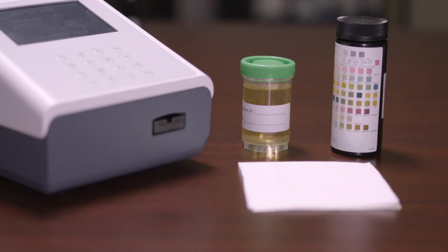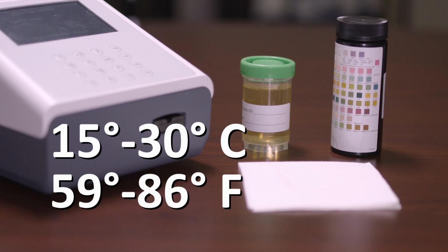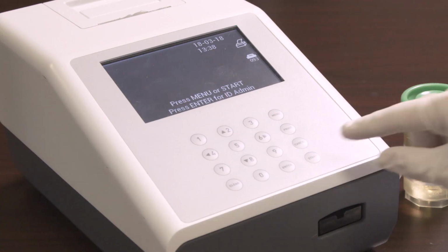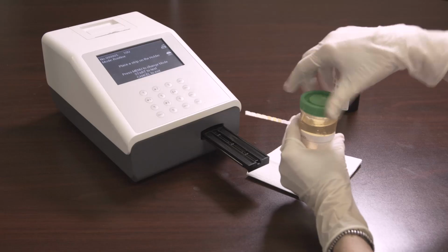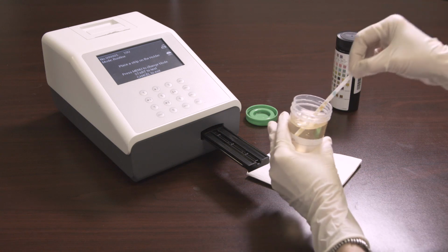To begin testing, allow the strip, urine specimen, and/or controls to reach room temperature at 15 to 30 degrees Celsius or 59 to 86 degrees Fahrenheit prior to testing. Remove the strips from the closed canister. Once Start is pressed, the clock will start to count down from 65. The operator has 3 seconds before the triple beep sounds to immerse the strip into the urine. Immerse the reagent areas of the strip into the sample for 1 to 2 seconds after hearing the beep.